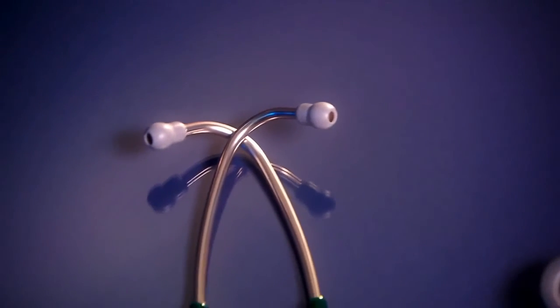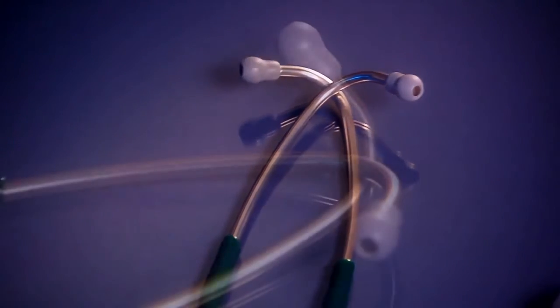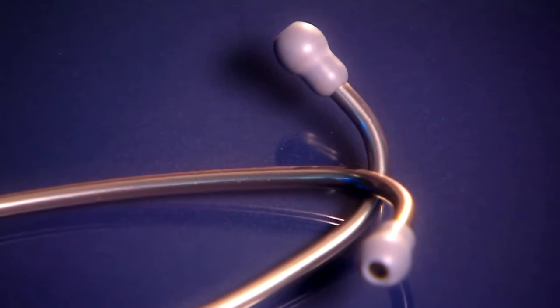Our soft seal ear tips with our patented SnapTight feature provide an excellent acoustic seal and comfortable fit.